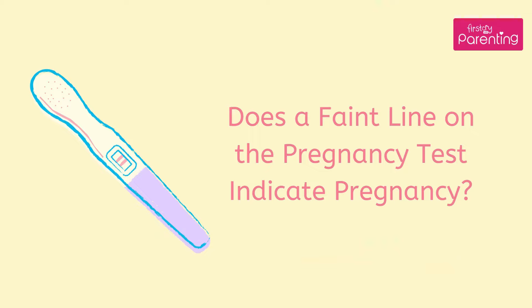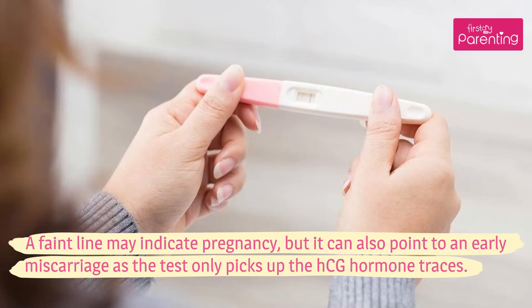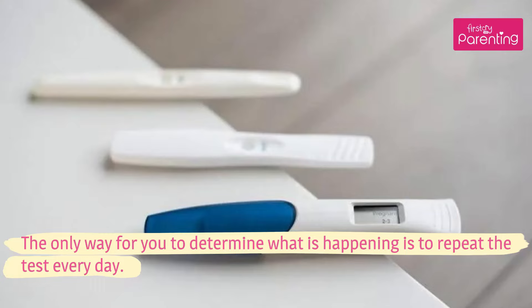Does a faint line on the pregnancy test indicate pregnancy? A faint line may indicate pregnancy, but it can also point to an early miscarriage, as the test only picks up the HCG hormone traces. The only way to determine what is happening is to repeat the test every day.